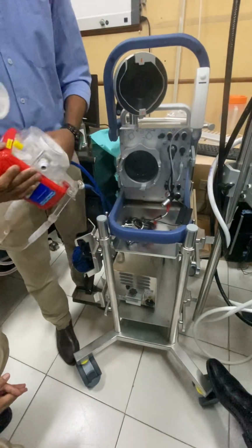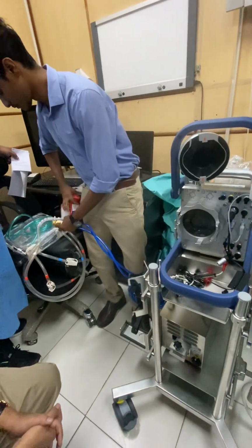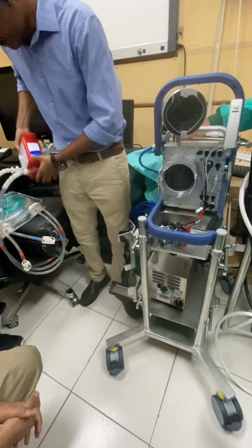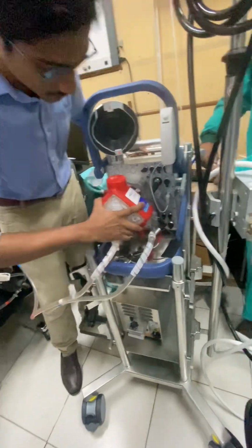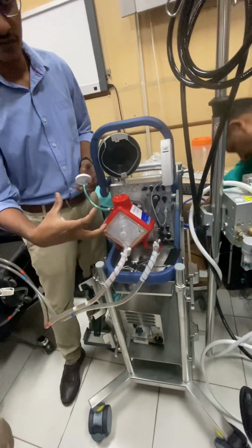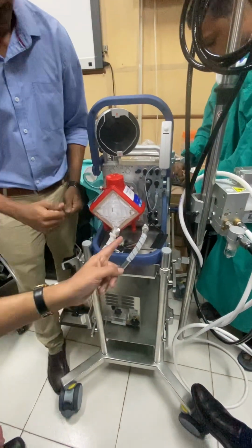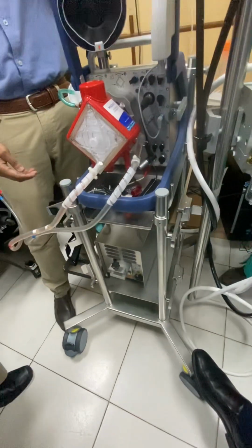हीटर का काम है। Okay. So we have fixed the oxygenator, we have fixed the gas line, we have fixed the heater unit, ये lines. इतना कनेक्ट करो यहाँ से नीचे से घुसाओ, we can take it from here. अच्छा ठीक, ओके.